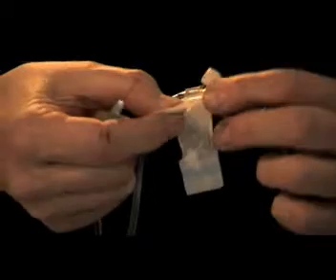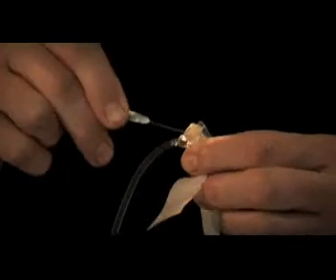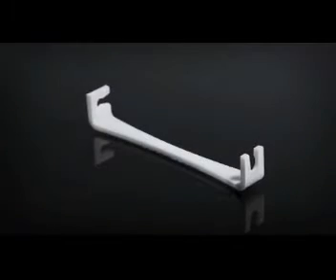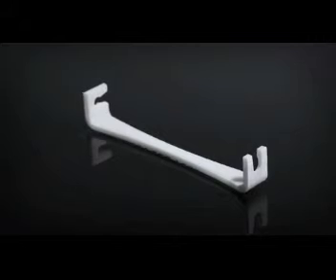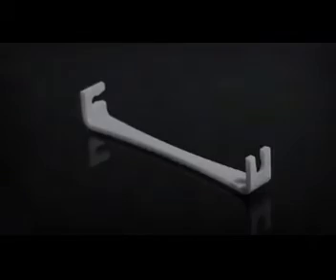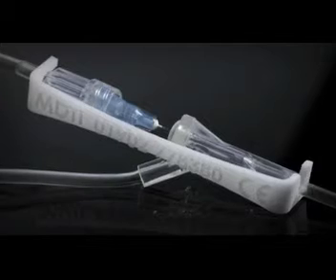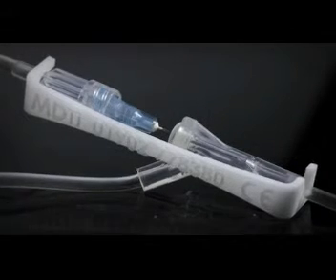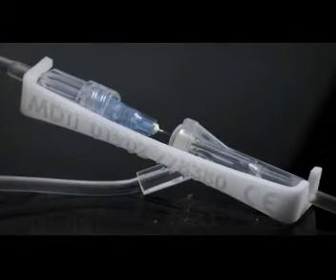This situation created a need to develop a device to keep the piggyback in place that was itself safe to use and promoted best practice. The result is a simple plastic clip which attaches to the lines once they are connected and holds them together so that they cannot separate accidentally.